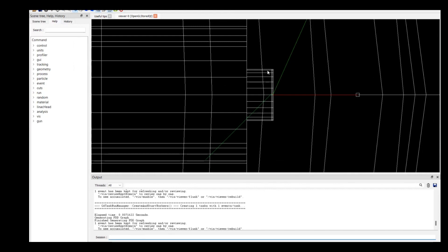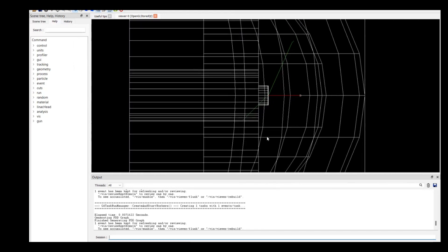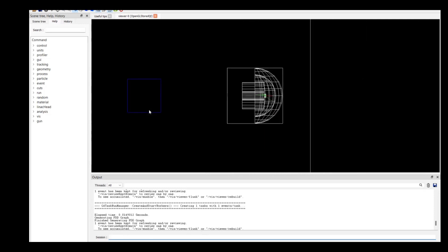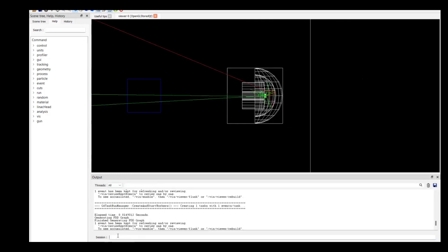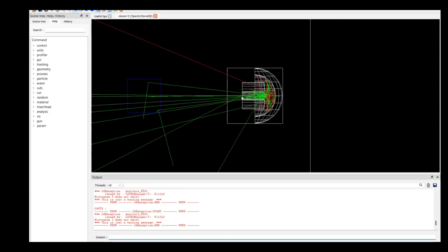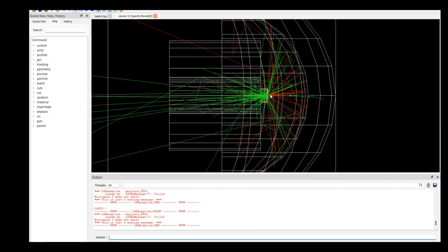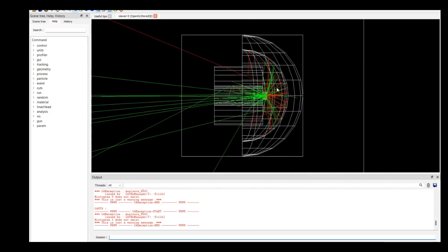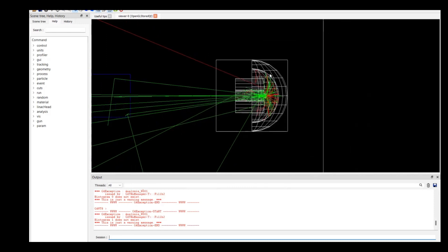Every once in a while, the Bremsstrahlung will kick in and produce an X-ray. As you can see, it's kind of random. But sometimes particles make it through the collimator and get over to the phantom. If I run a bigger simulation — say, 100 particles — we can see the beam forming on the left, and inside the head it's crazy chaos because of all the scattering particles. I didn't explain this semicircle — it's made out of lead. All these geometries have assigned materials, and this lead is blocking the radiation so it doesn't spray out behind the LINAC head.